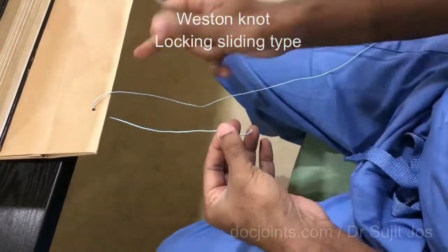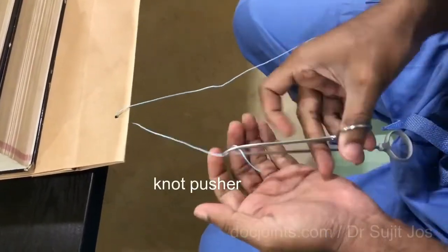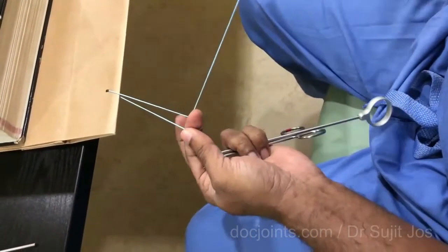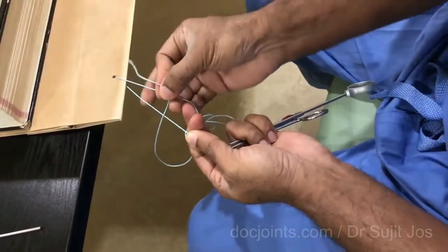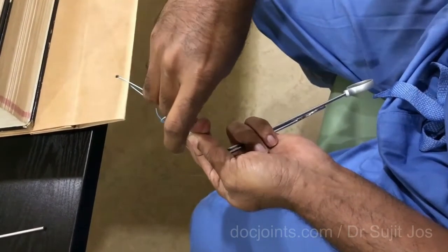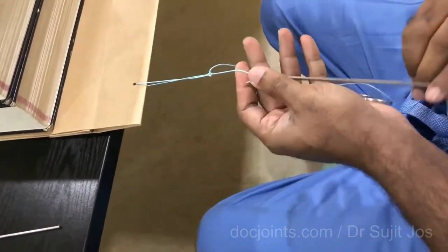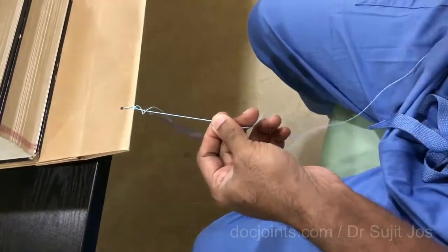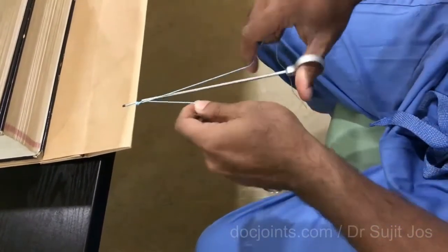You decide the post. This one is the post and this is the knot post. You pass the post through the eye of the knot pusher and lock it with a mosquito. In similar fashion as before, pass the knot post over your finger. This time, instead of going around, you go in between the threads — once, again between the threads the second time, and between the threads the third time. Now you come out passing in the loop just beyond your finger, tighten this, and use the knot pusher to push the knot toward the area you want tightened. Use the mosquito to advance over the post, shorten it again, and use the knot pusher to tighten the knot.